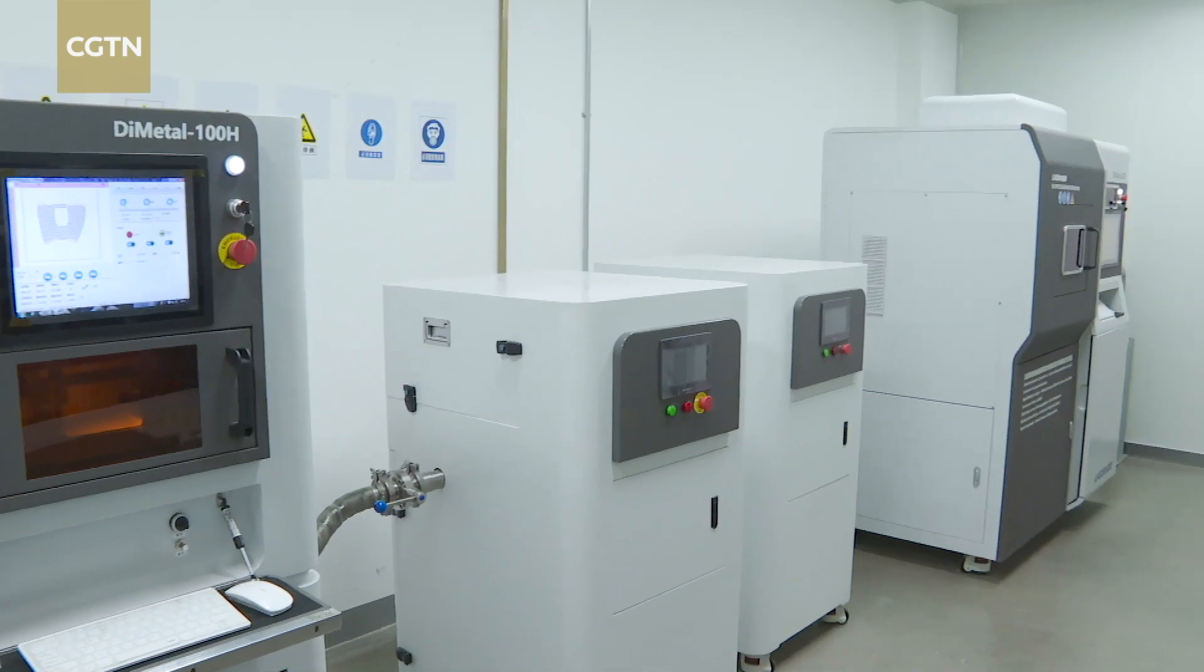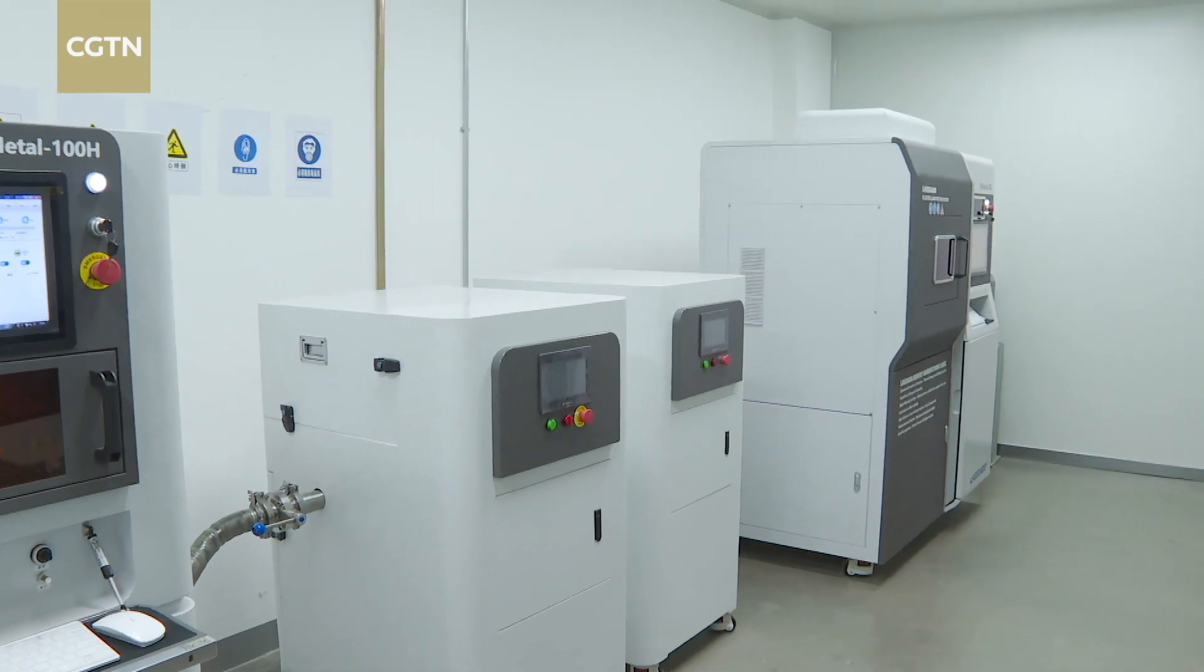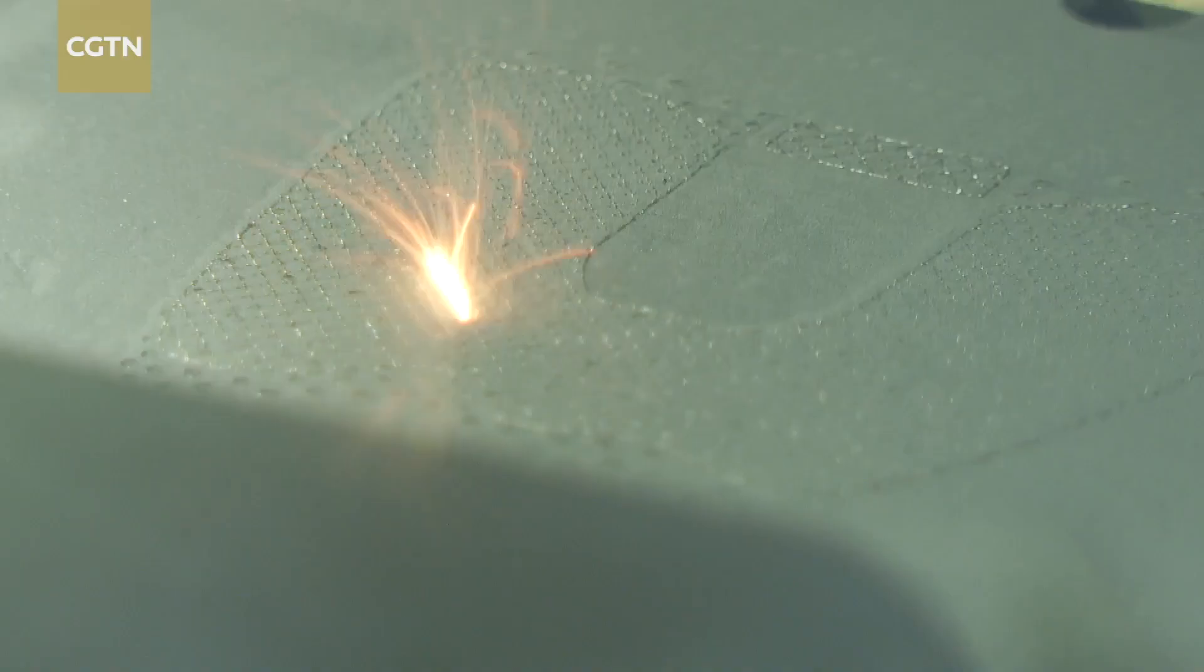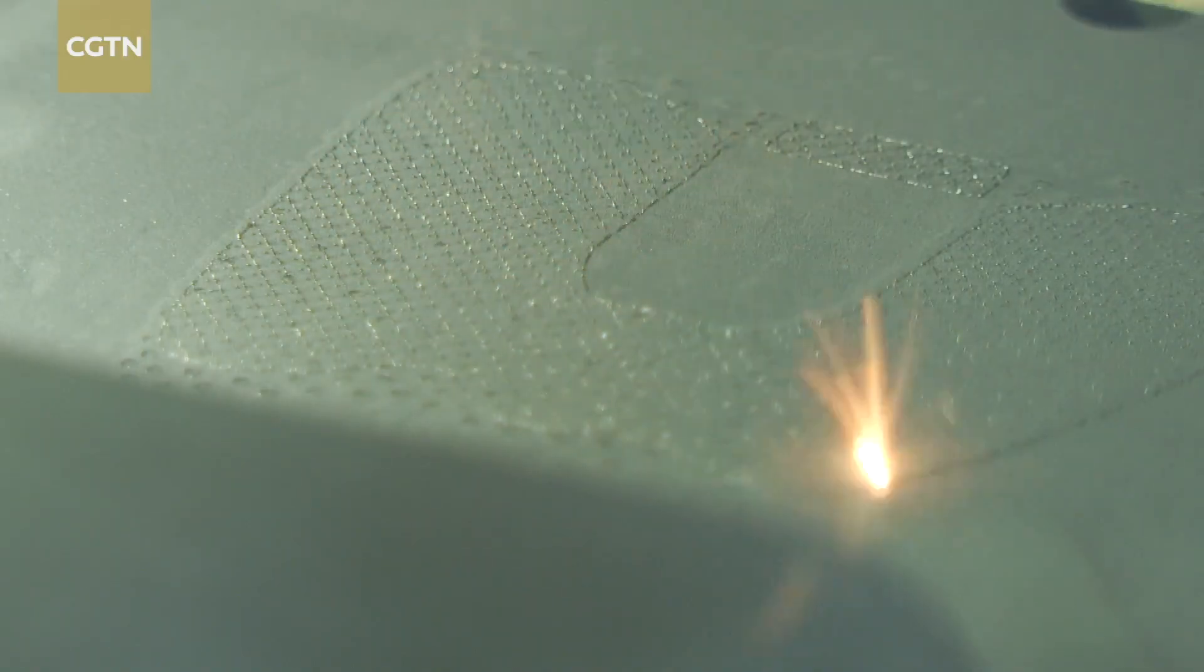The 3D printing technology behind this new method is currently able to produce high-density artificial bones with high tear- and wear-resistant materials.